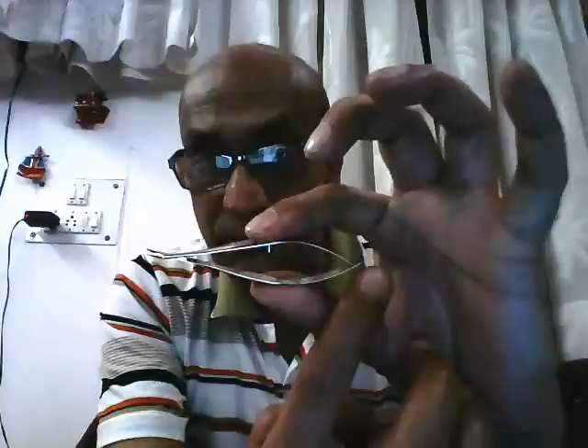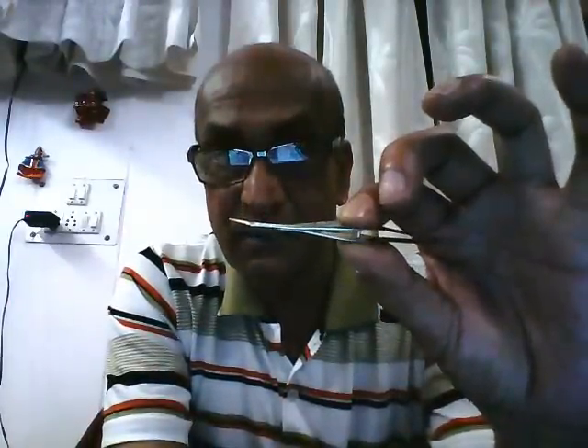The gripping surface is ridged and corrugated to allow a gentle, secure hold. There is a governor with a small projection that limits the maximum pressure between the limbs. The cutting end is angled, making this an angled scissor. The angulation occurs at a swivel joint — unlike the box joint seen in earlier instruments.